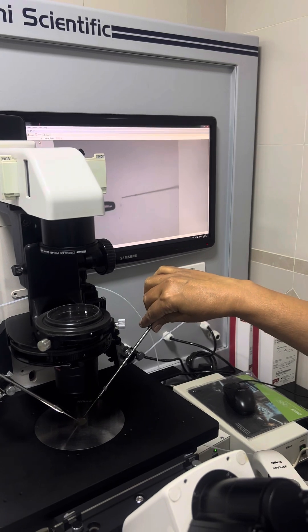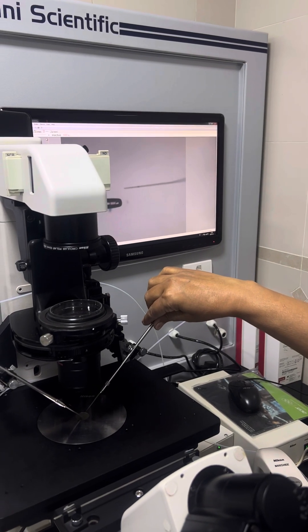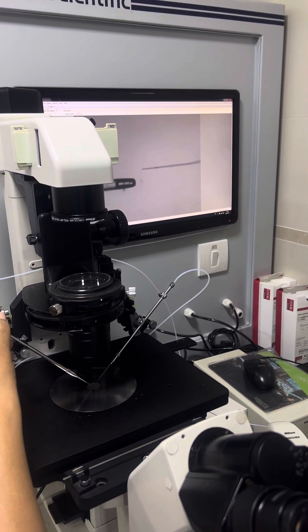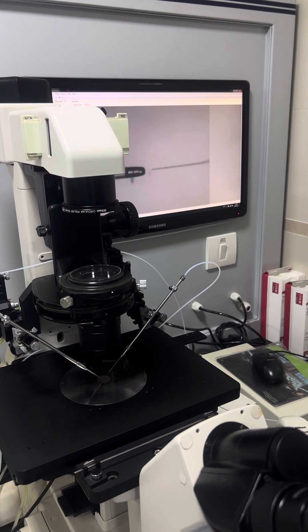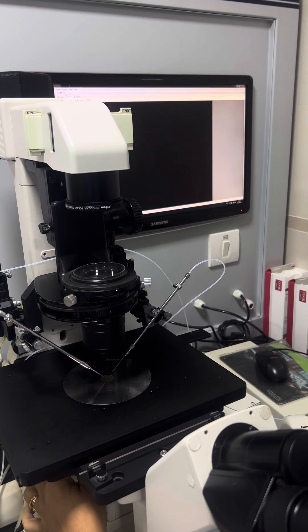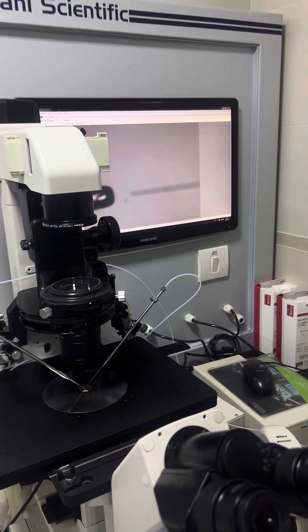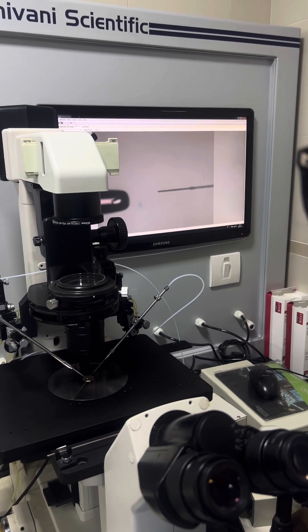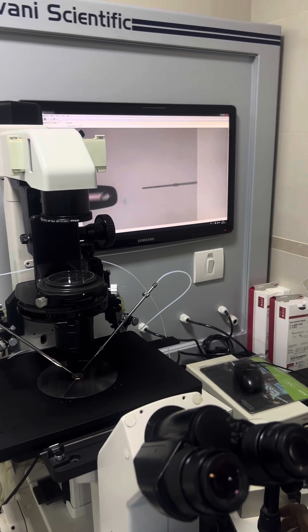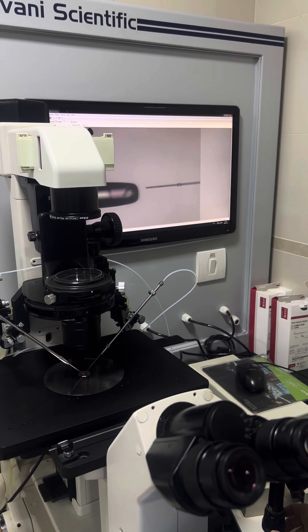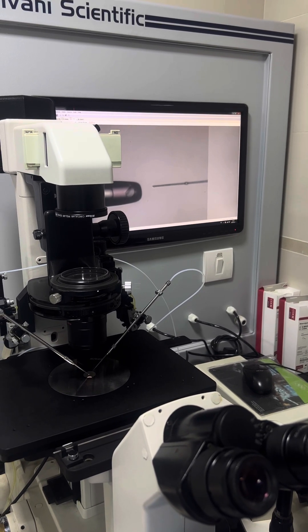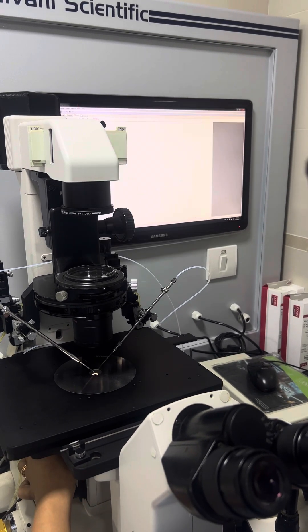Once you have done the setting in 4x, then gradually increase the power of the lens. So 10x. And now only use the fine adjustments. And then in 20x.